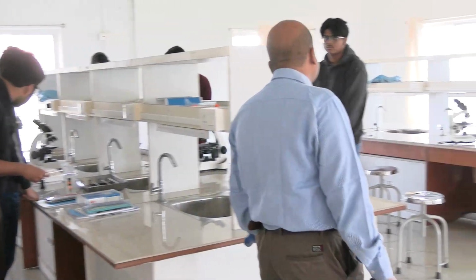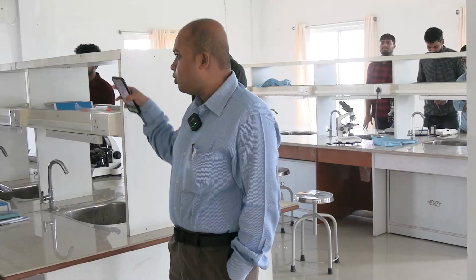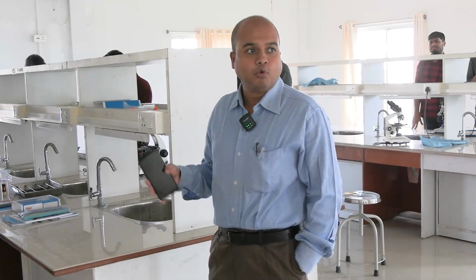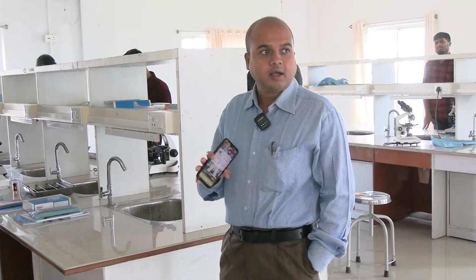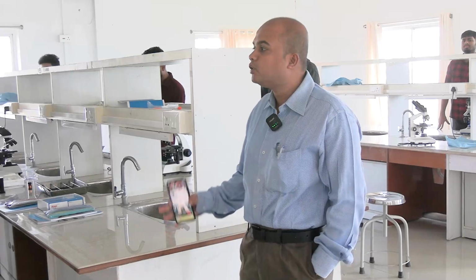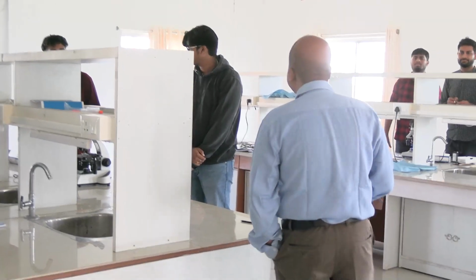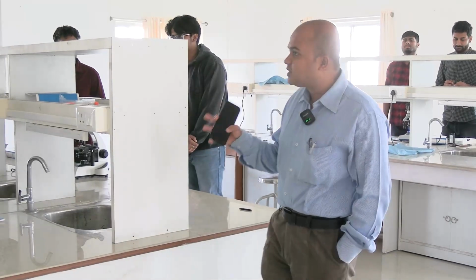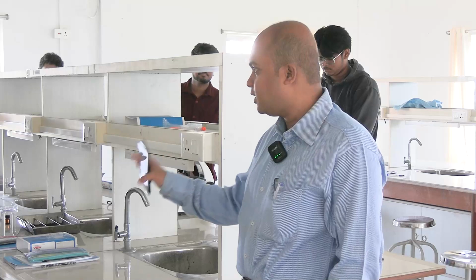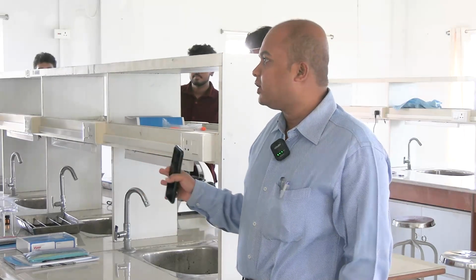Another question that is asked is, after acid hematin is formed, what we add is distilled water. Instead of adding distilled water, if we add more HCl, will the experiment be possible or not? So what do you think is the answer? Possible or not? It is written in the book that it is possible. After acid hematin has been formed, whatever we add, either distilled water or the acid itself, does not alter the experiment.